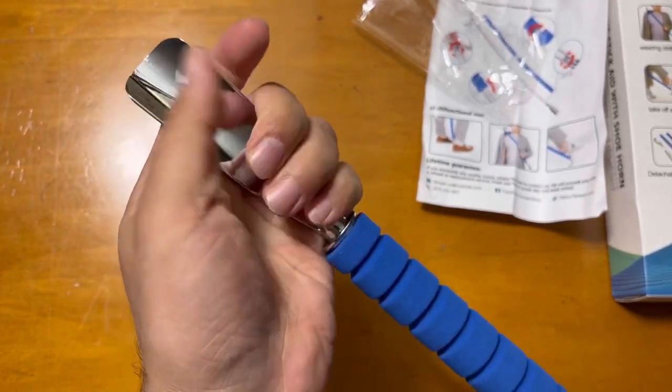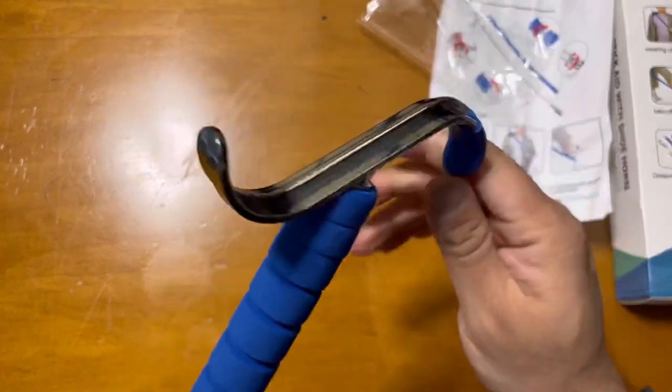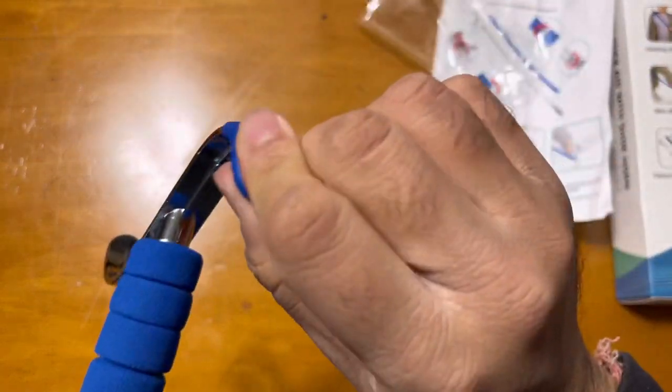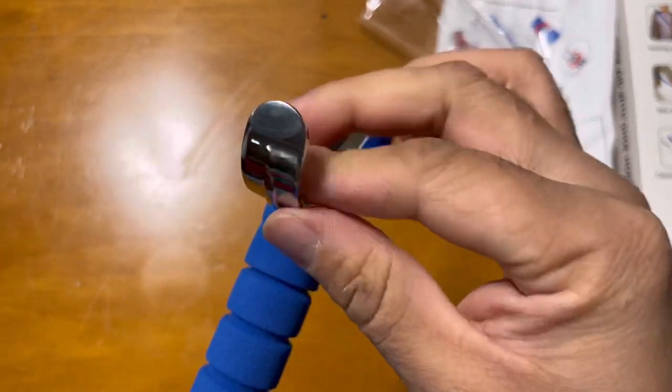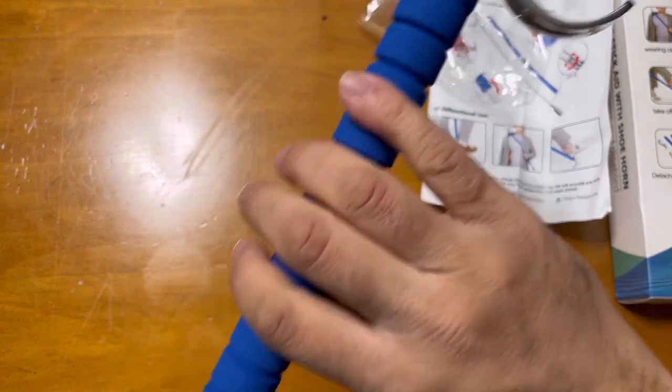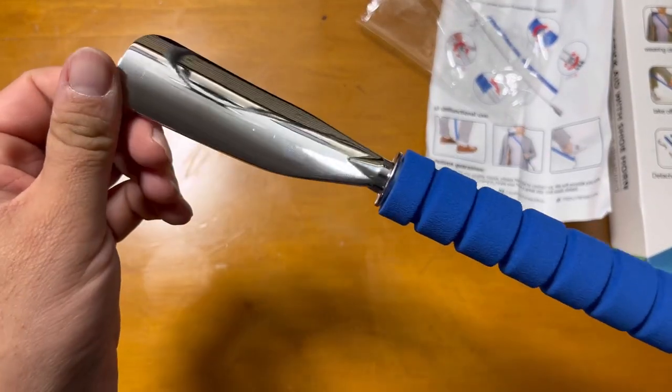Once both things are all set... This is the cushion so it won't harm anything. You can see the silicone tip - this one is for the socks side, and this one is for the shoe side.